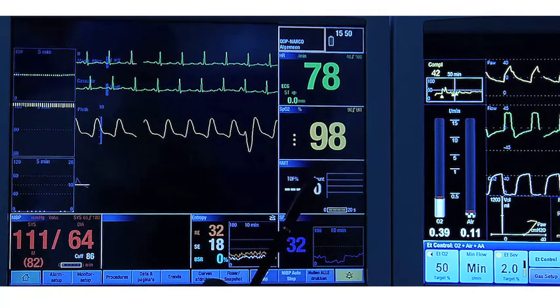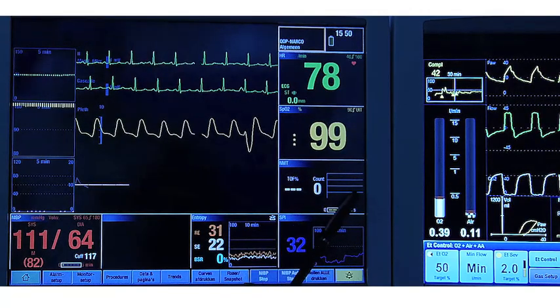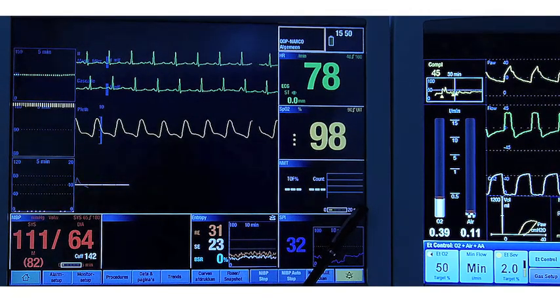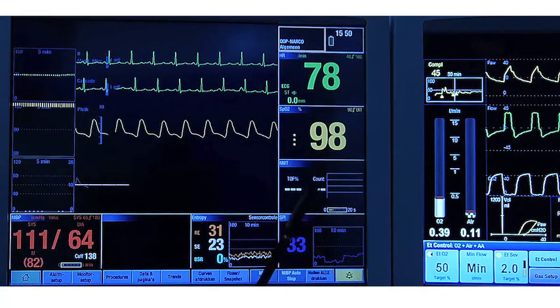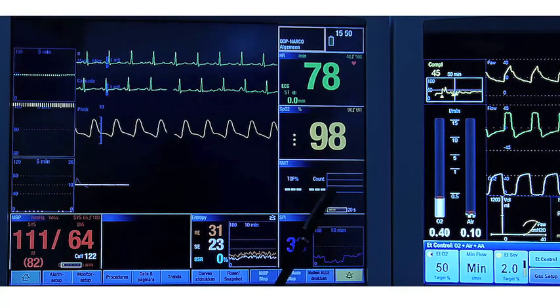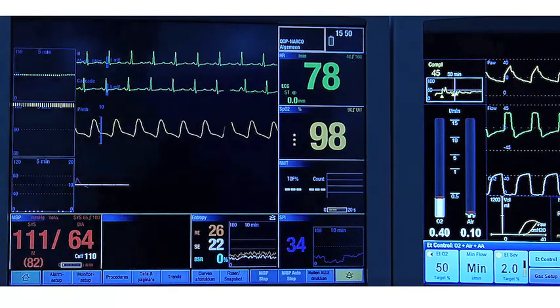Some systems then give here a value one, two, or three if it's detected later on. This system is great and it doesn't show any number when the first stimulus is missing.